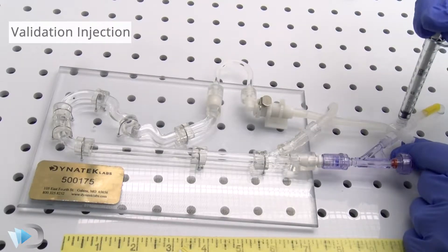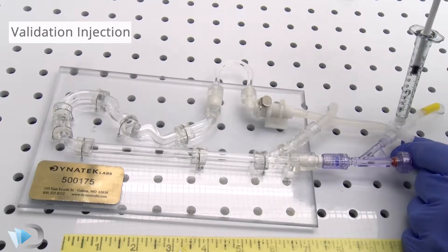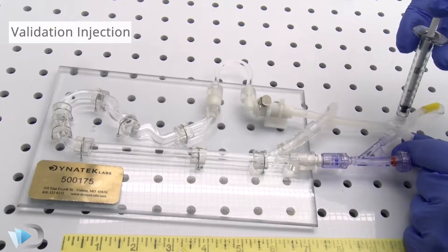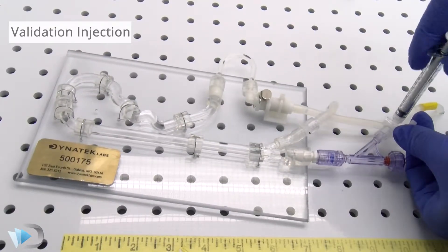Before beginning a test, the instrument is validated by injecting and quantifying particles of a known size through a tortuous path, which mimics anatomical worst-case conditions.